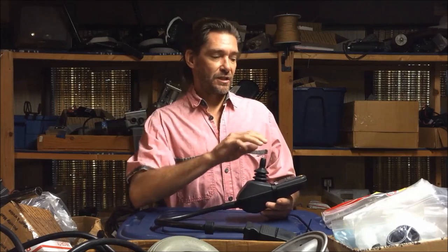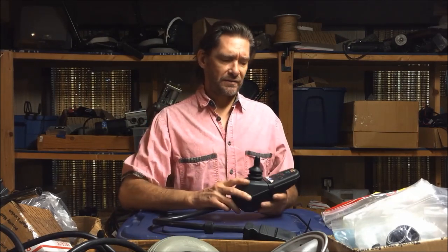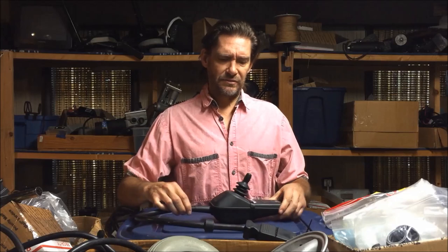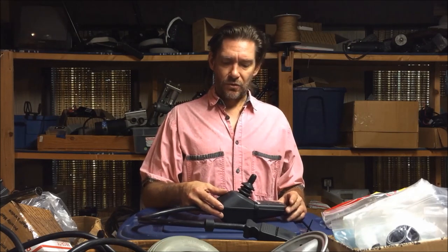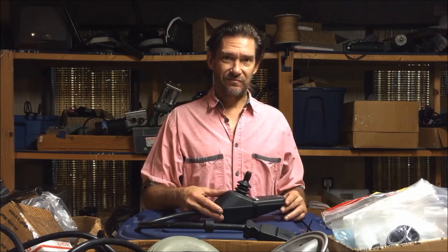If everything lights up fine and looks all good, and then you go to start it and it doesn't start, you end up with this. But if you end up with this as soon as you turn it on, that means you probably have a circuit board problem, and that's no good. That would be the first, most consistent fault that these have.